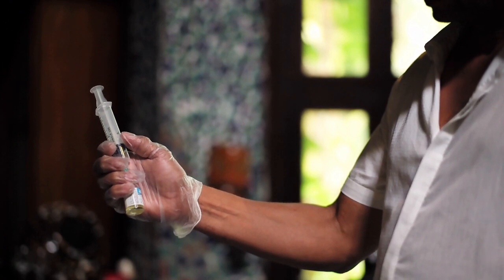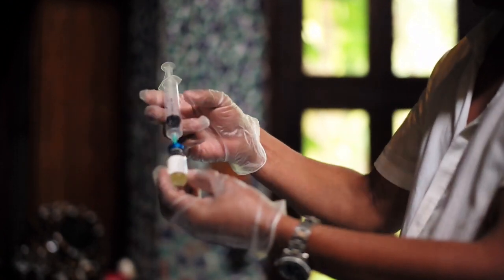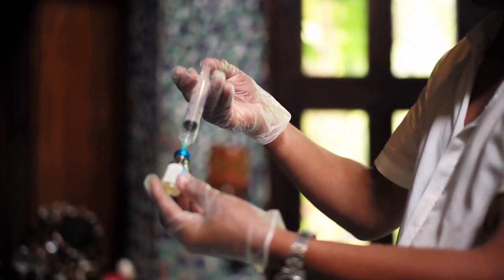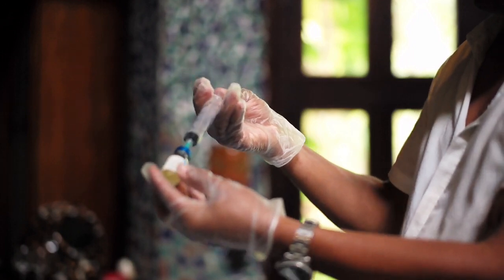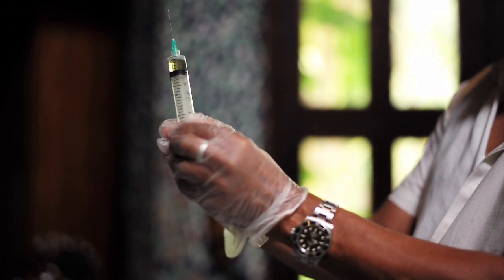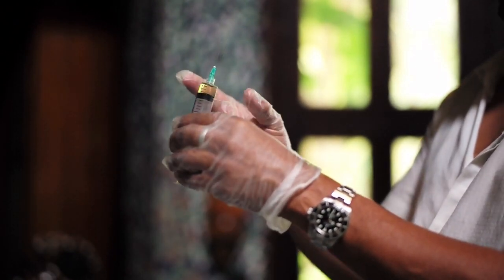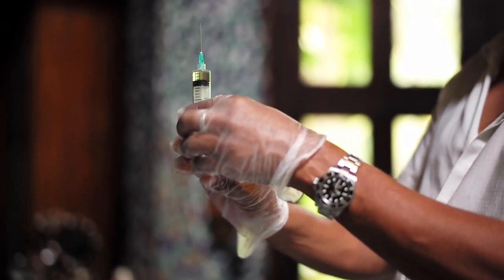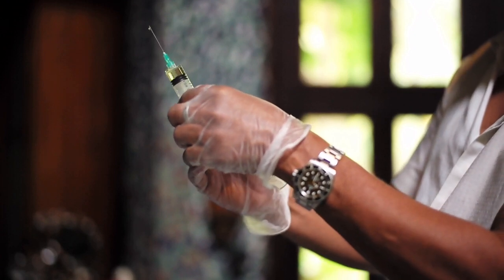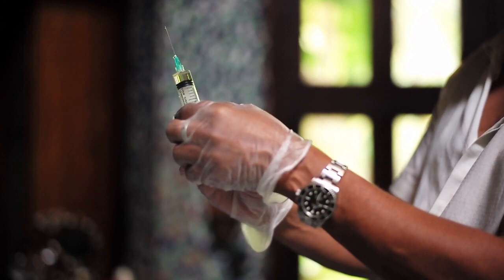The antibiotic is all dissolved, no more of the white powder. You'll notice that the syringe is up, so we're going to just push the syringe all the way down and turn it upside down. So we're going to just get the air out, push the plunger up nice and slow. Got to tap it a little bit and then get all the air bubbles out. Okay, and it's right at about the 3.5, 4 mils, which is where it should be.